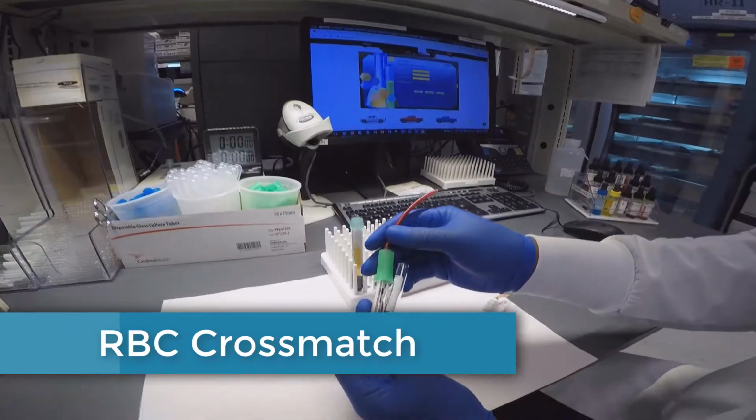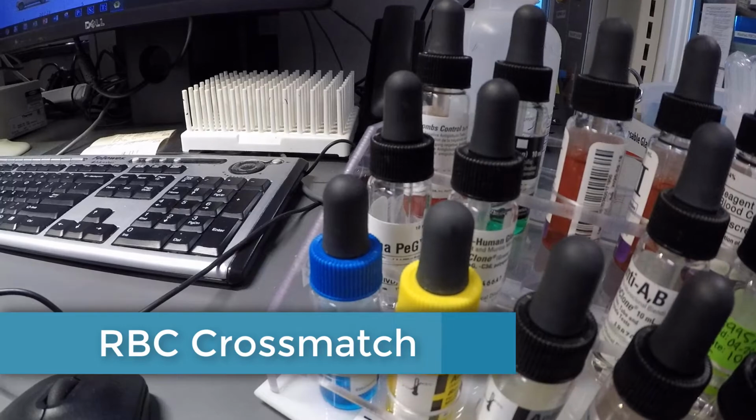Welcome! This video is a basic demonstration of serological crossmatch.